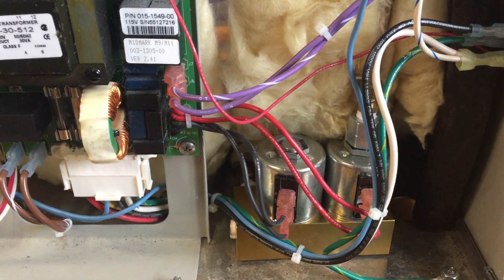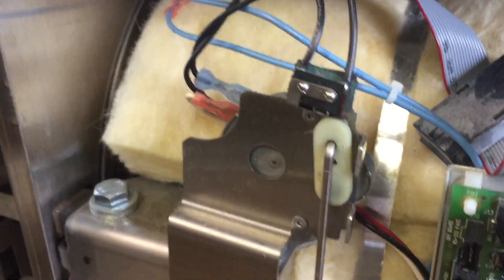These are the fill and exhaust valves. There is also another one — we call it the air jet valve, and safety valves. Also, the cooling fans are here. This is the door open mechanism here.